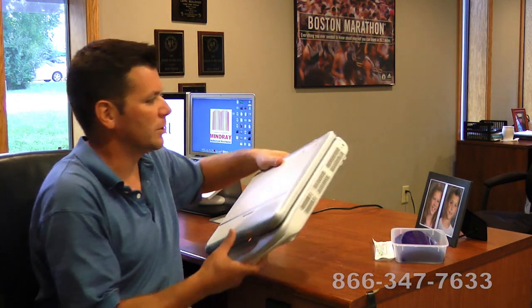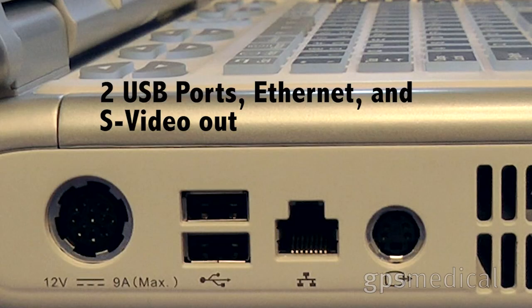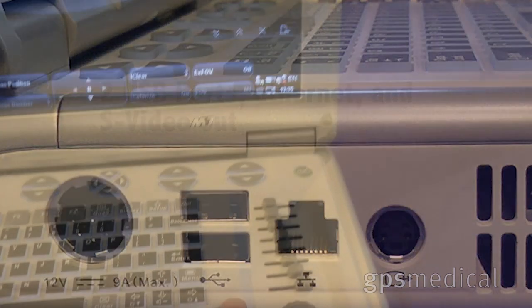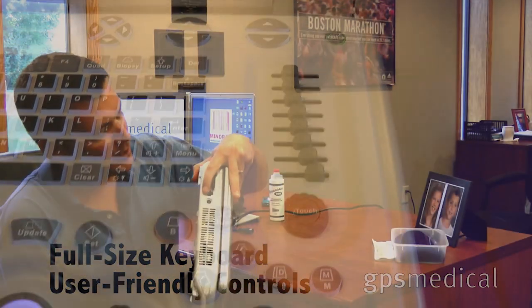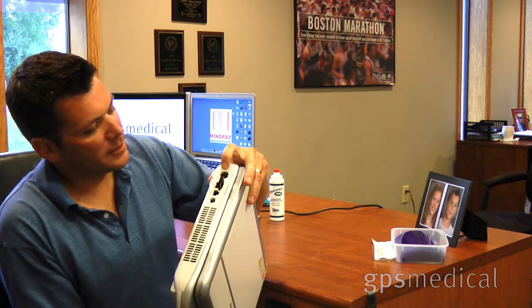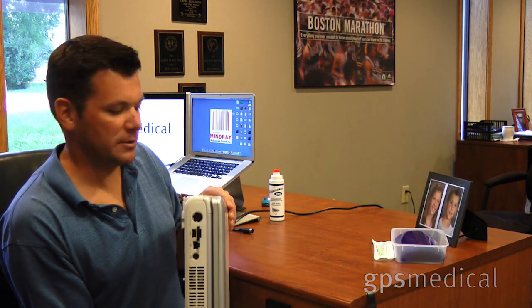Those are some of the technology names from other manufacturers. It's about 14 pounds, and like the other Mindrays, it has one transducer port. You also have a USB port for exporting images, an Ethernet port, power, and also an S-Video Out port for an external monitor, which is awfully nice if you're doing 4D imaging.